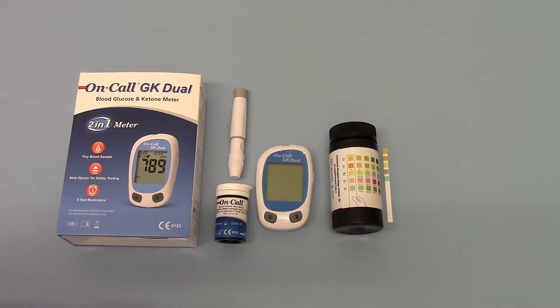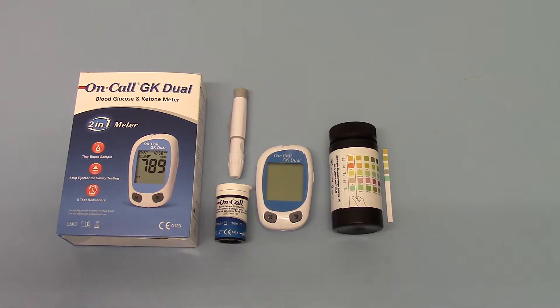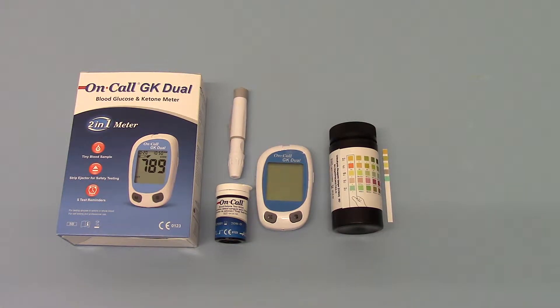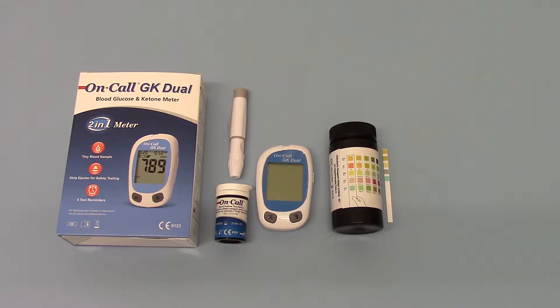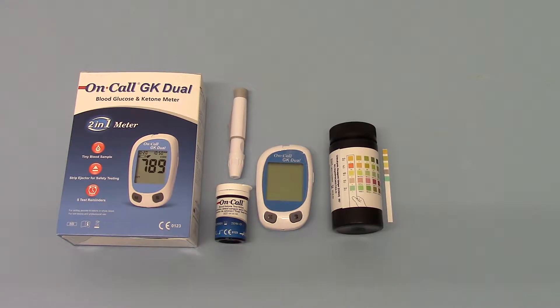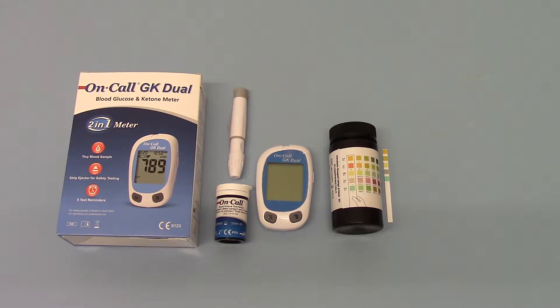When you look up and try to Google what a normal blood ketone level is, you'll see that a normal range for a healthy individual is somewhere between 0 and 0.6.